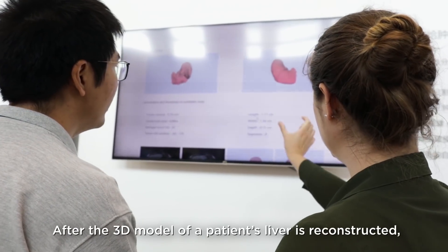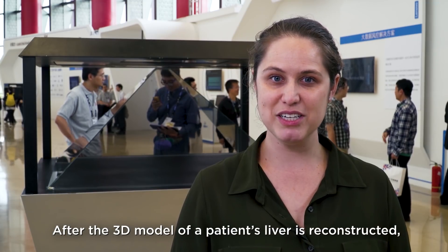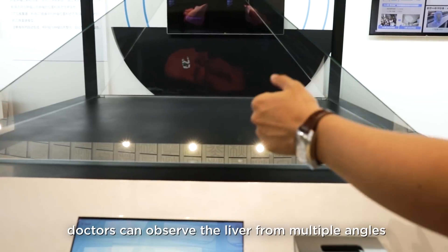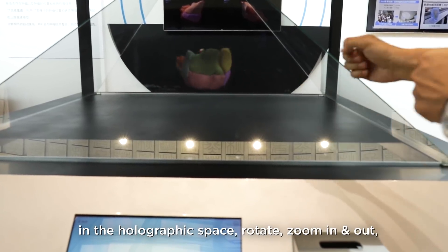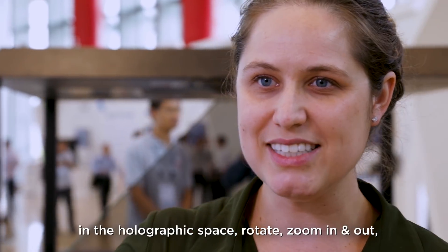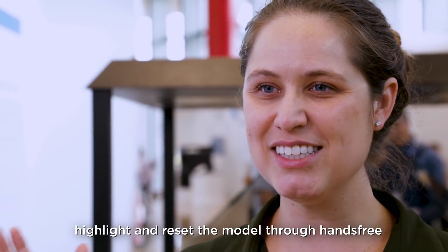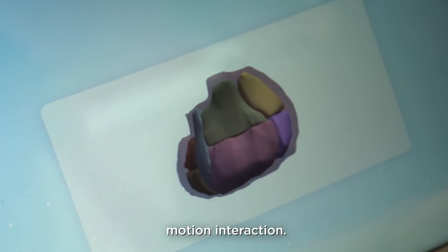After the 3D model of a patient's liver is reconstructed, doctors can observe the liver from multiple angles in the holographic space — rotate, zoom in and out, highlight, and reset the model through hands-free motion interaction.